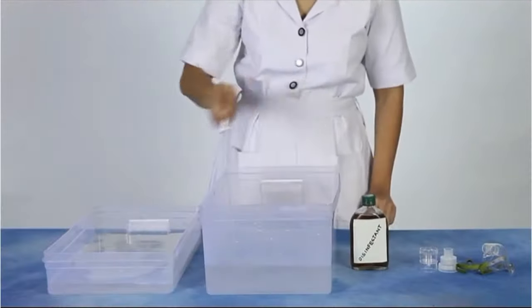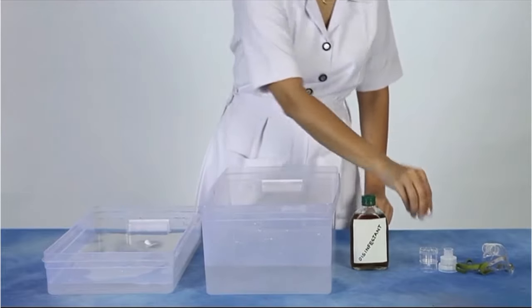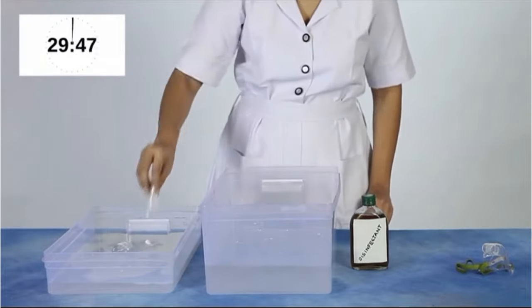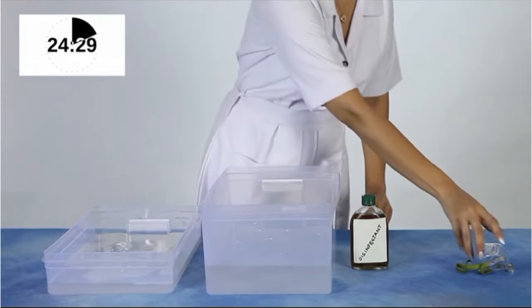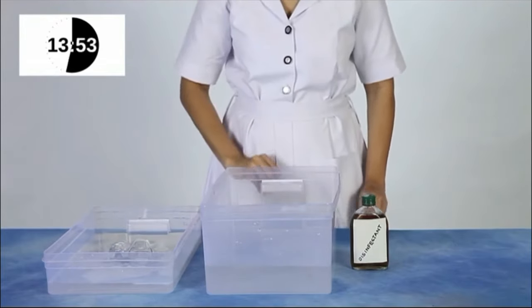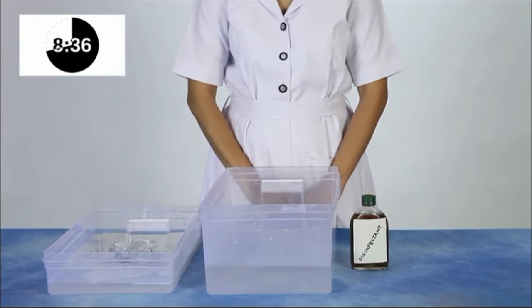In a clean container, soak all the accessories except the tubing for 30 minutes in a commercially available medical disinfectant or a mild detergent, or vinegar solution (one part white vinegar and three parts warm water).